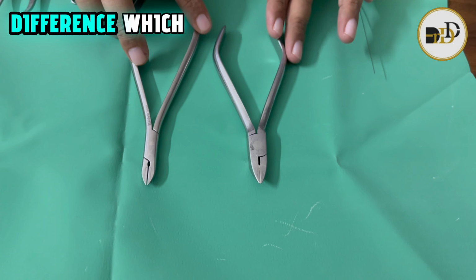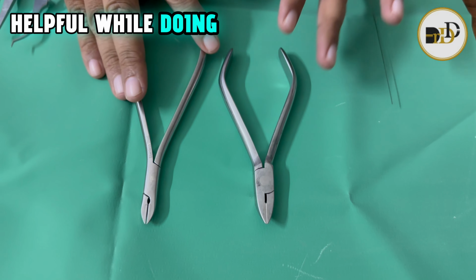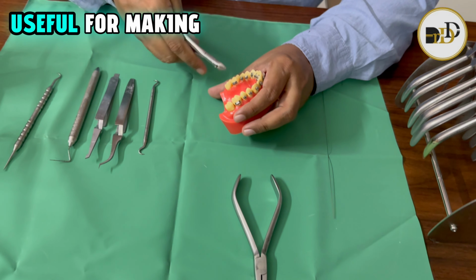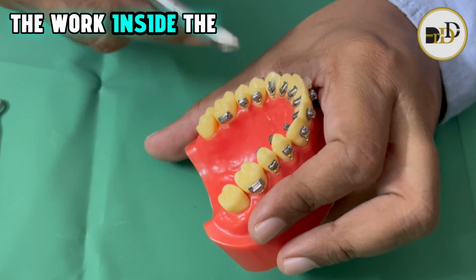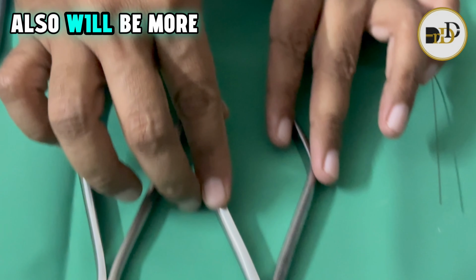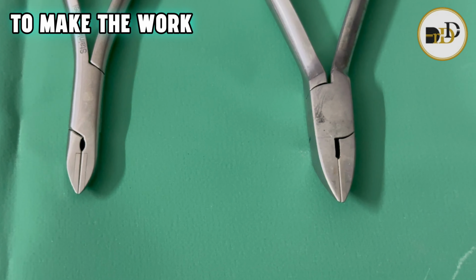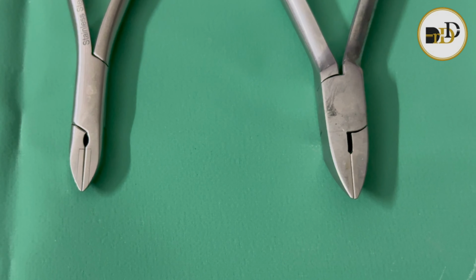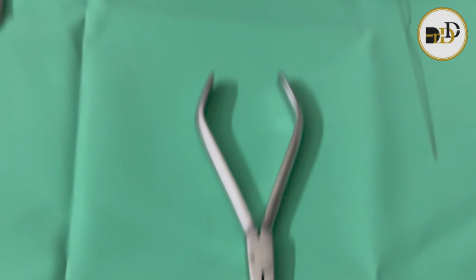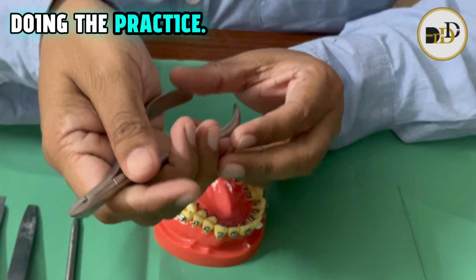This is the main difference, which makes the lingual instruments significantly helpful, because these long arms are useful for working inside on the lingual side. The tips are also thinner, as the interbracket span becomes less on the lingual side. The instrument's dimension should be smaller so that it becomes easy to practice.